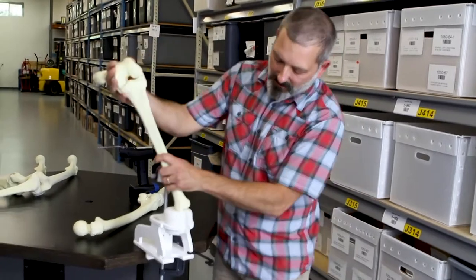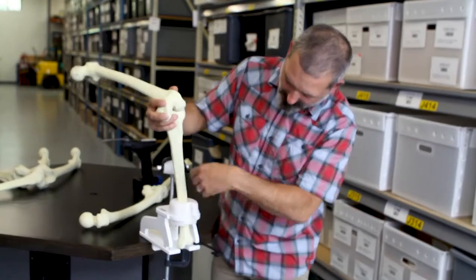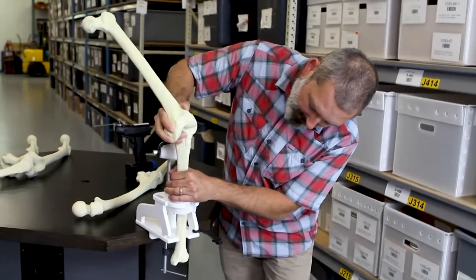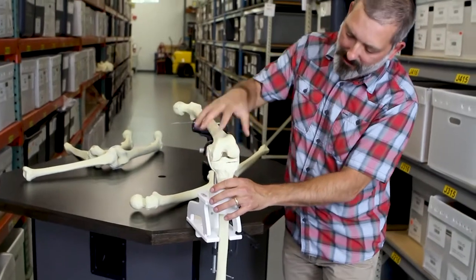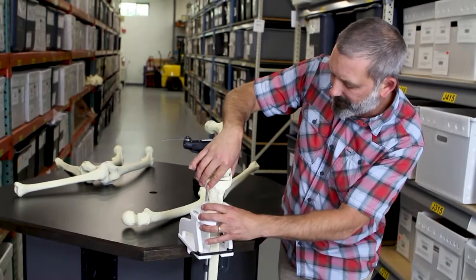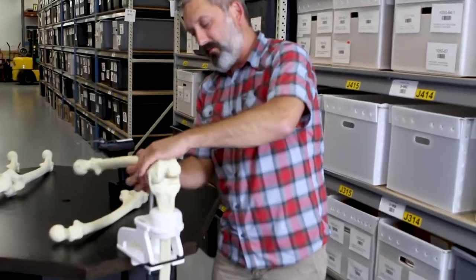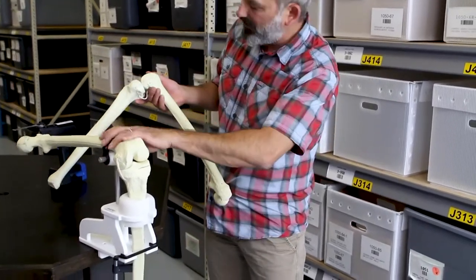Right now I'm using a full-length knee. You just insert it through the circular area here — you'll notice it will stop. Then you rock it back and slide it into this key-in feature here until it comes to a good stop. Close the gate, which is here to keep the tibia from moving about when you're doing a procedure. Your femur is then secured in place by this black strap, and it rests on a soft conical-shaped support in the back.